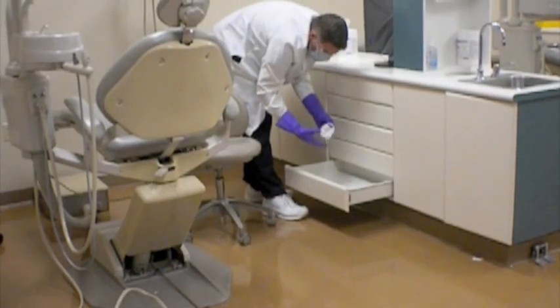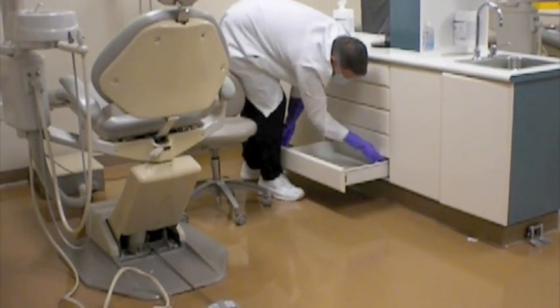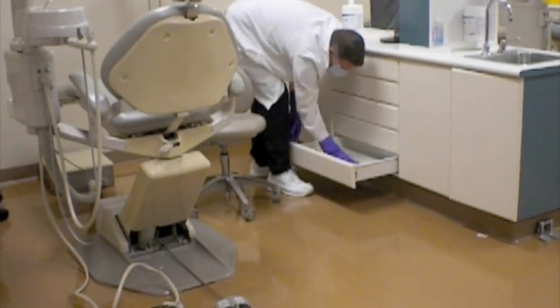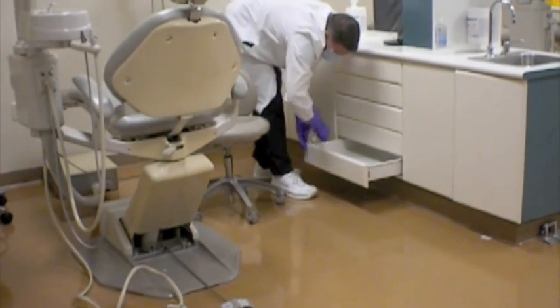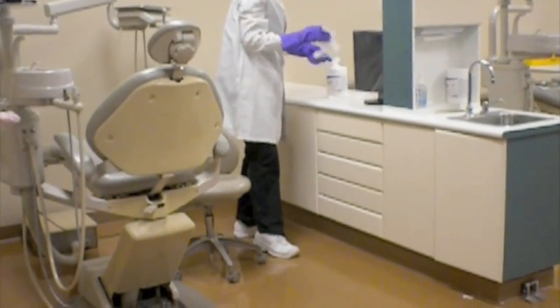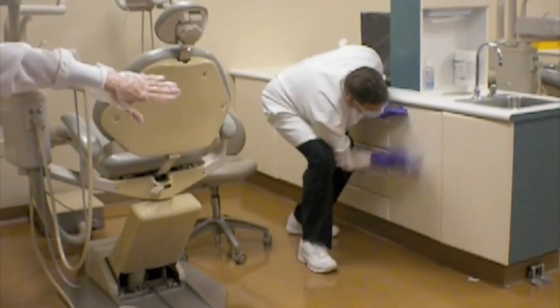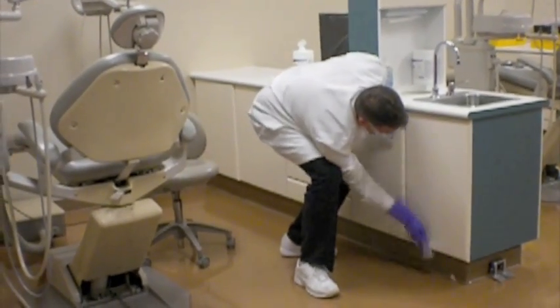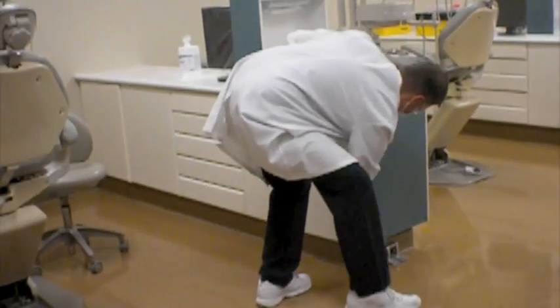Drawer number 5, you'll wipe from top to bottom, going around the top surfaces of all of those on the edges, and then you'll wipe pushing from front to back to continue wiping those drawers. Once you're through with that, you'll continue with the cabinetry doors at the sink area, including the front of each cabinet area. Okay, so if you have a front or a back, depending on the unit that you're stationed at, you may have both, you would wipe the front of this as well.